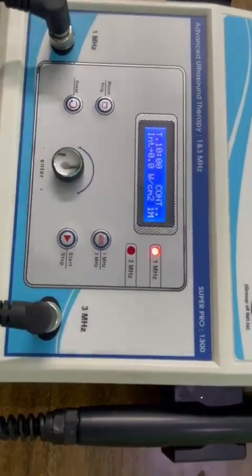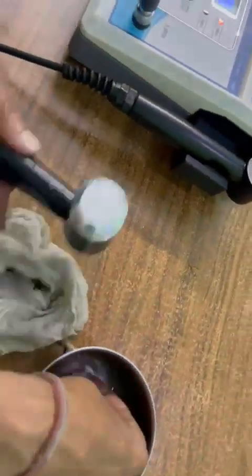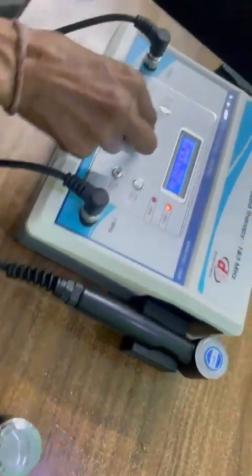Now you can test the unit. How to test? Put some water drop on ultrasound head and simply increase the intensity.